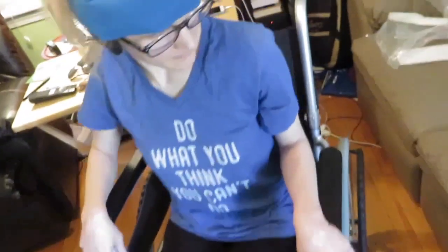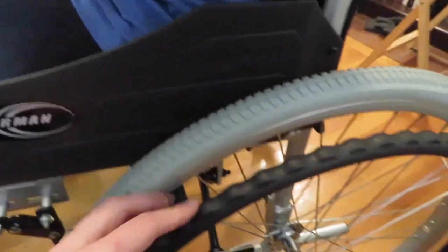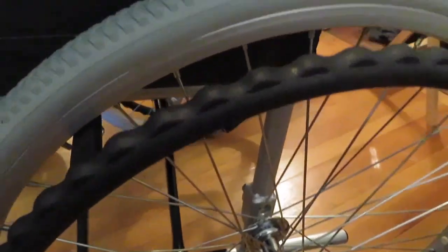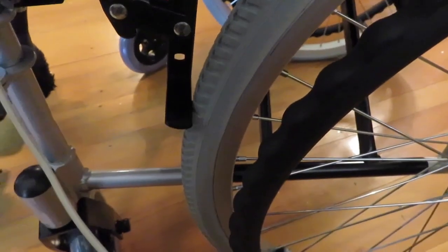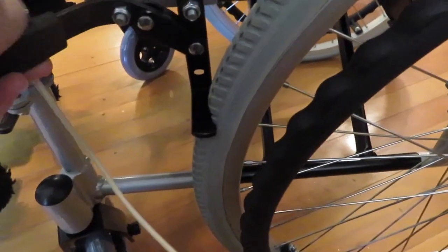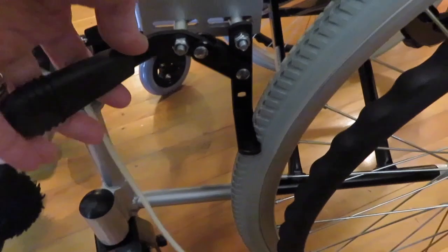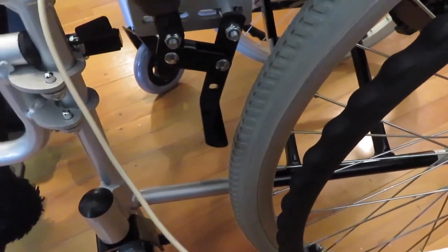Some things I noticed at the back: it has a cushion along the top for your upper back. The wheels are hard rubber and they're treaded, which is pretty nice. The hand grips are very grippy. And the brakes are solid — they're hard rubber so they press in well and work as solid brakes.